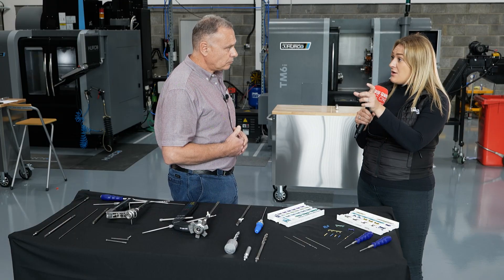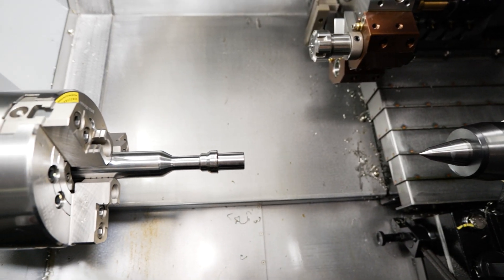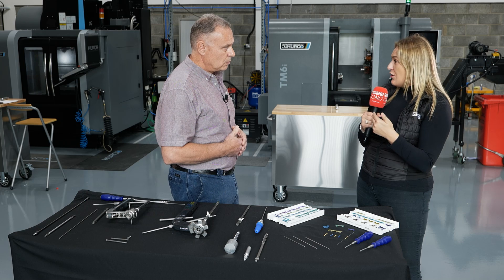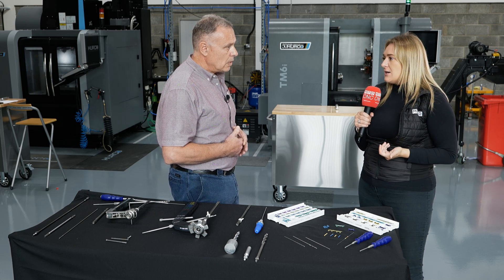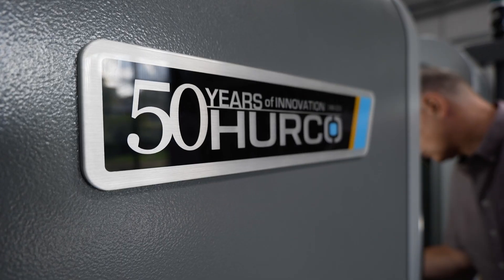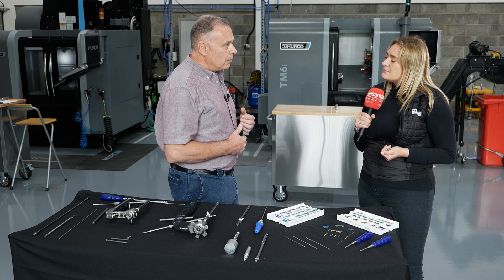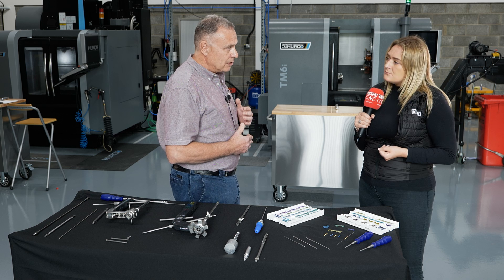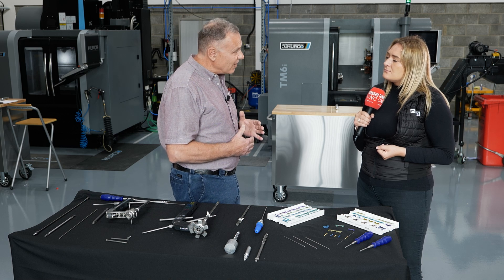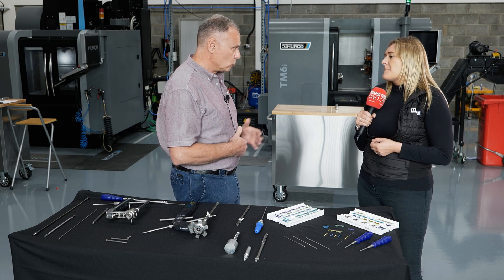So you've missed that market for that period of time, and if the surgeon does come back and say 'can you just tweak this a little bit?' — exactly, it's going to take a longer period of time. But now that you've got these machines — a mill and a turn — has it opened doors and brought lead times down? Yes, particularly on instrumentation. We're currently developing another system called Cognition, which is a nitinol staple implant, and we're now creating prototypes for the instrumentation that works with that staple. We can fine-tune and develop it in a fraction of the time compared to using an outsource subcontractor.